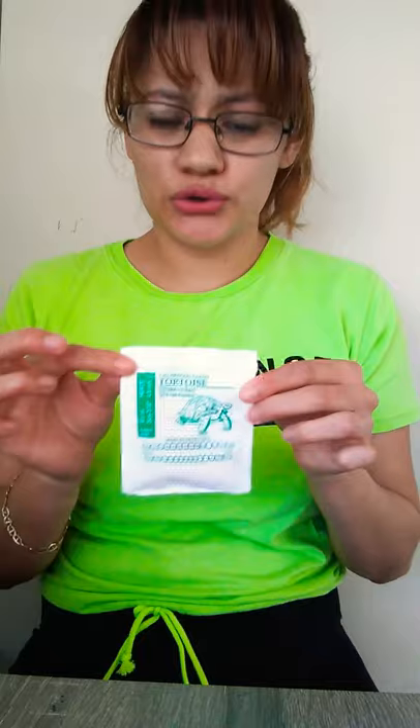They are the 4.8mm heavy, and you're supposed to wear them as much as you can. I only take them out to eat and then put them back on.